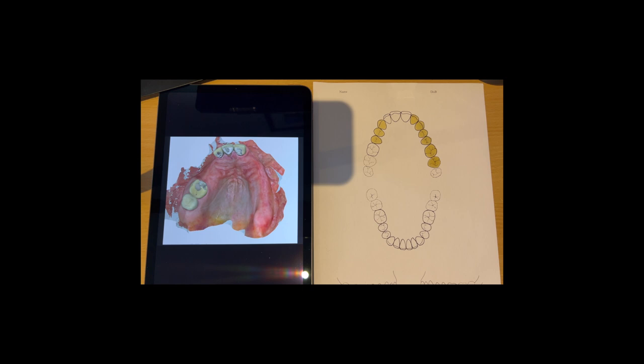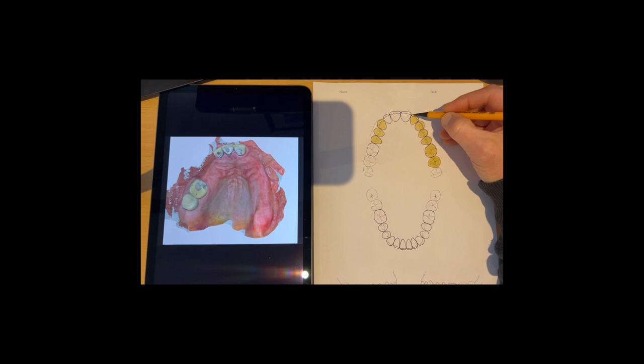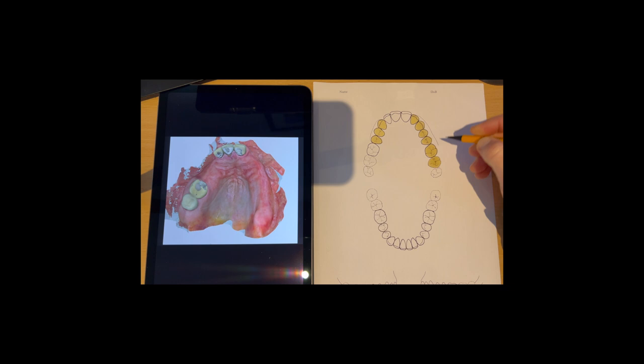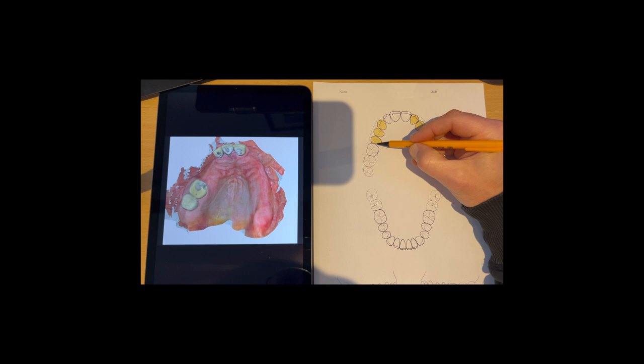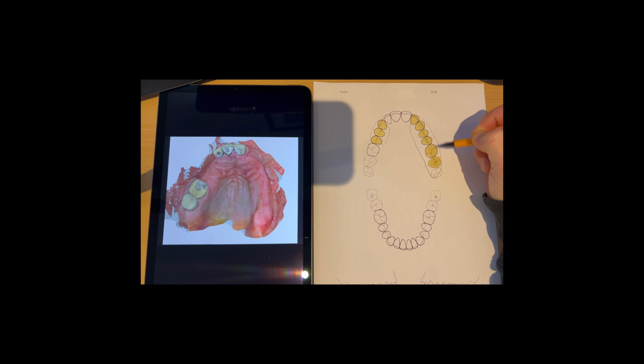And then what I'm going to do is to put on the saddle. So I want to replace the gumwork on this area here and then also all the way around the back here. Whilst I'm doing this, I'm just starting to think about retention and how we're going to keep this denture in place. And also, I'm just wanting to keep everything beautifully away from all of the gingival margins of these teeth. So I've got the two saddles just there.